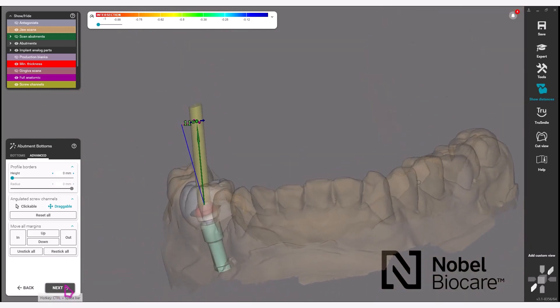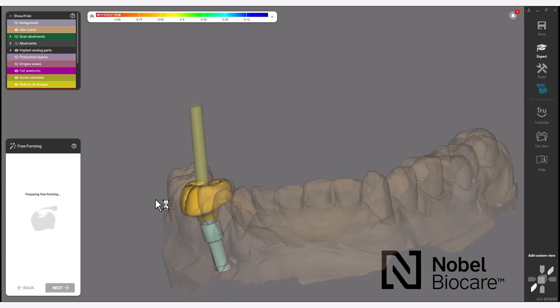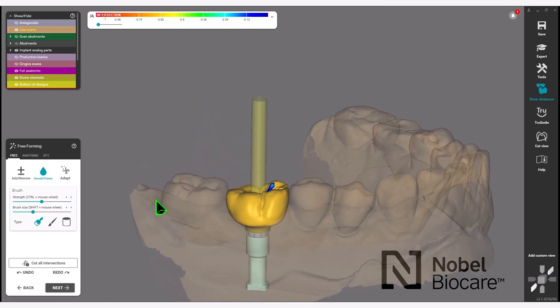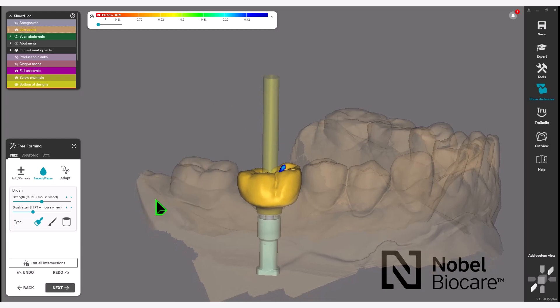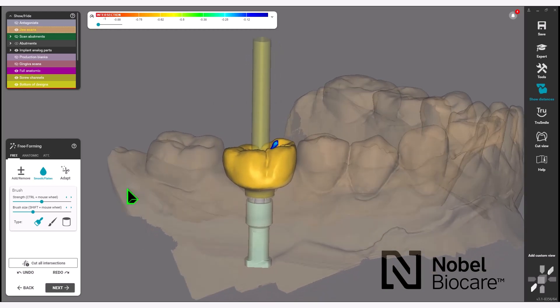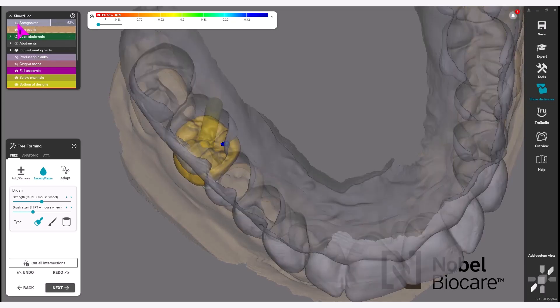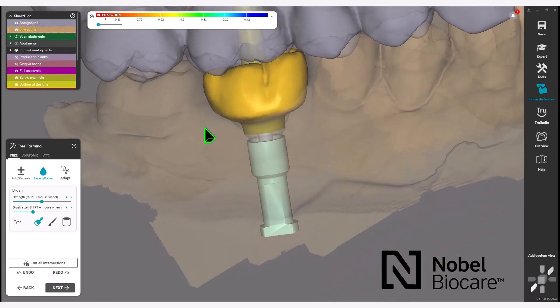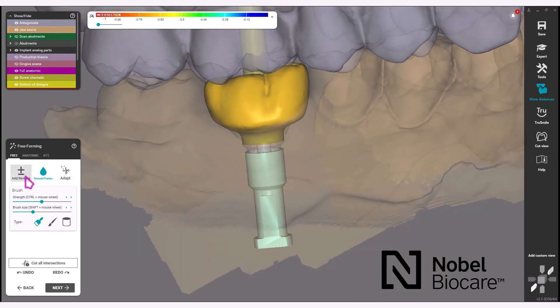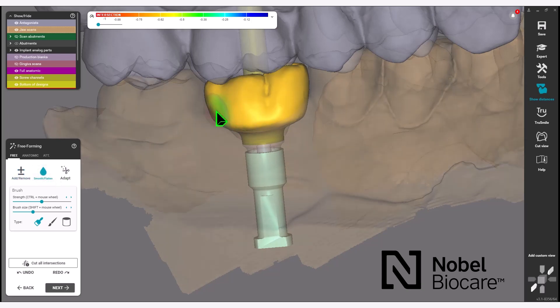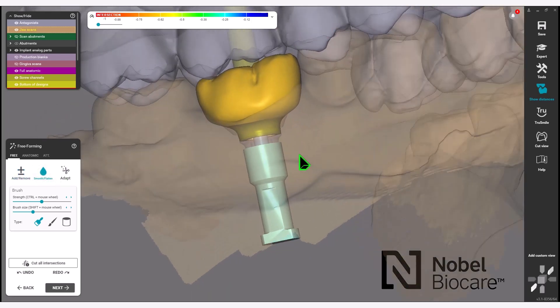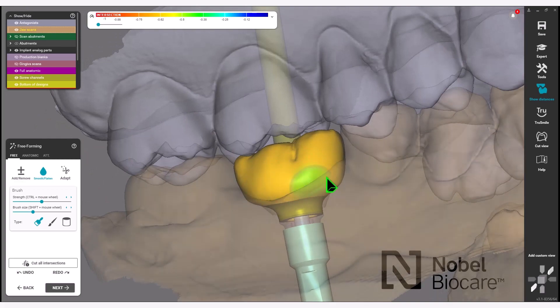Click Next in the wizard to proceed. In the free-forming section is where you have control to design the crown. Use the add and remove tools, as well as the smooth and flatten tool, to achieve your desired result for your crown shape.